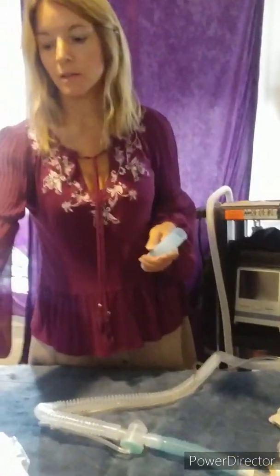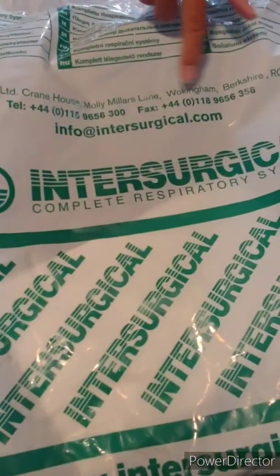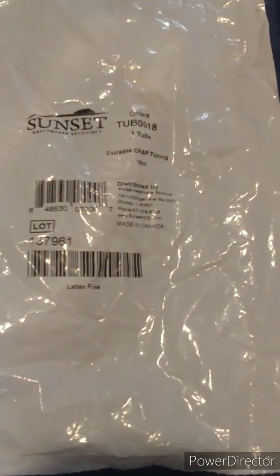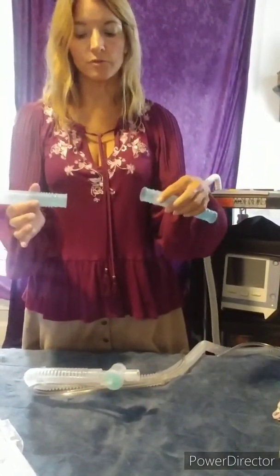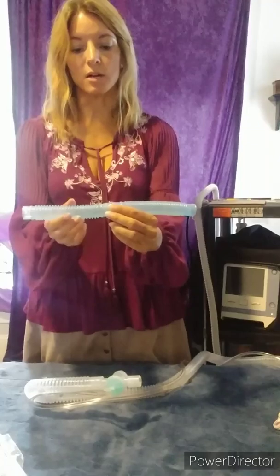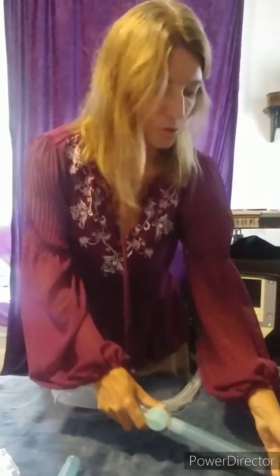The active circuit is offered by different companies — there's Philips Respironics and Intersurgical, and we have gotten both in the past. This is an example of the tube we use between the vent and the water canister. This connecting tube comes in a huge roll — I think we have 100 feet of it. It has places between each of the corrugated sections where you just cut it with scissors, giving you a 6-inch section which works really well to hook things up together.